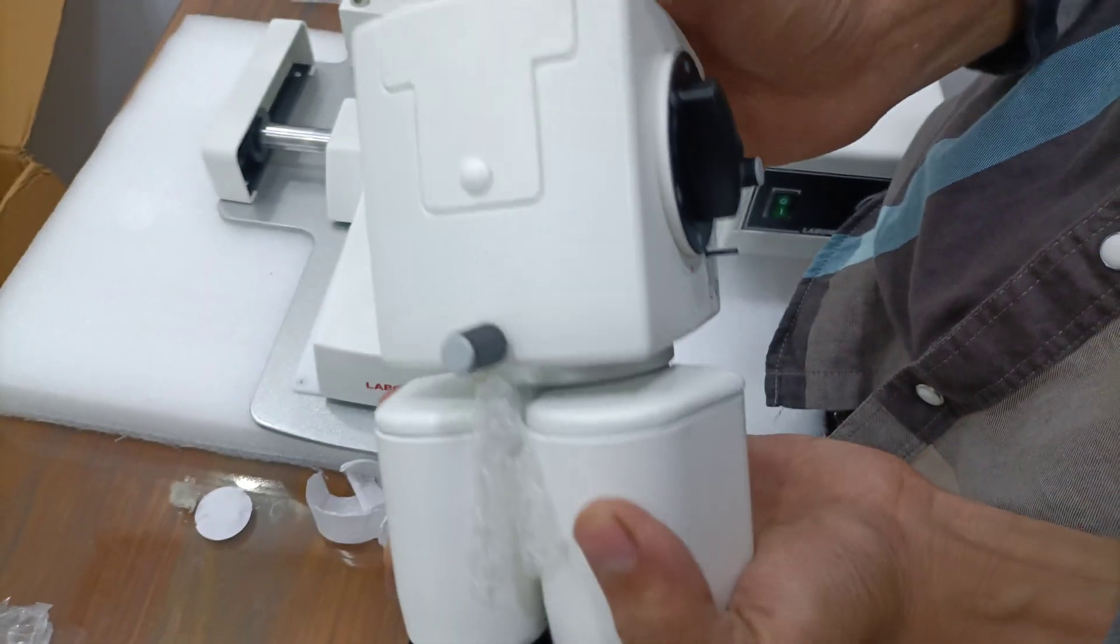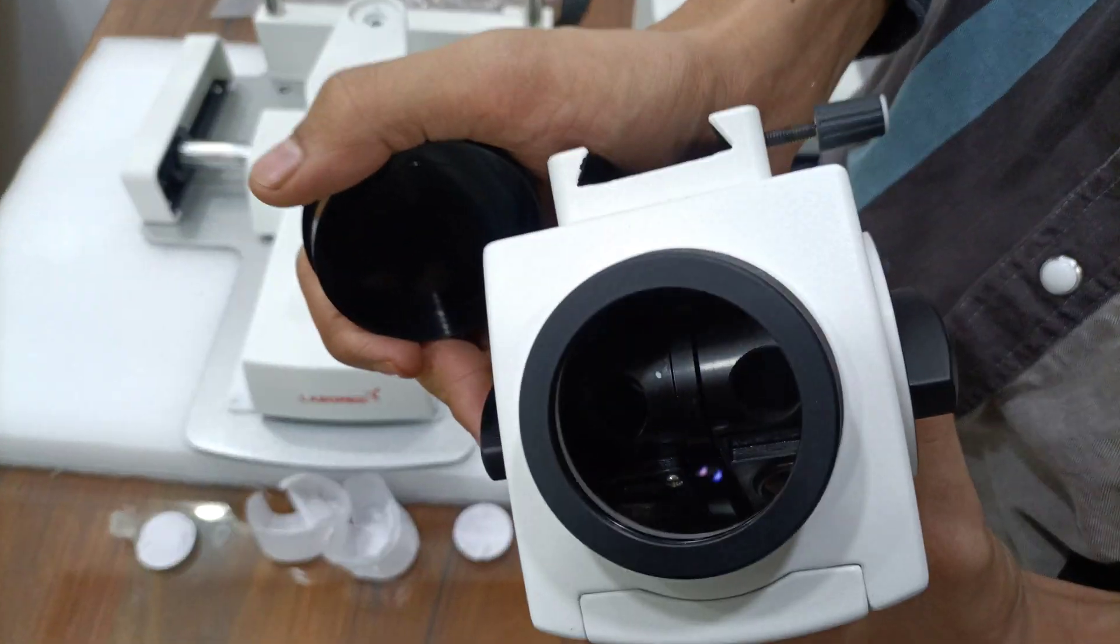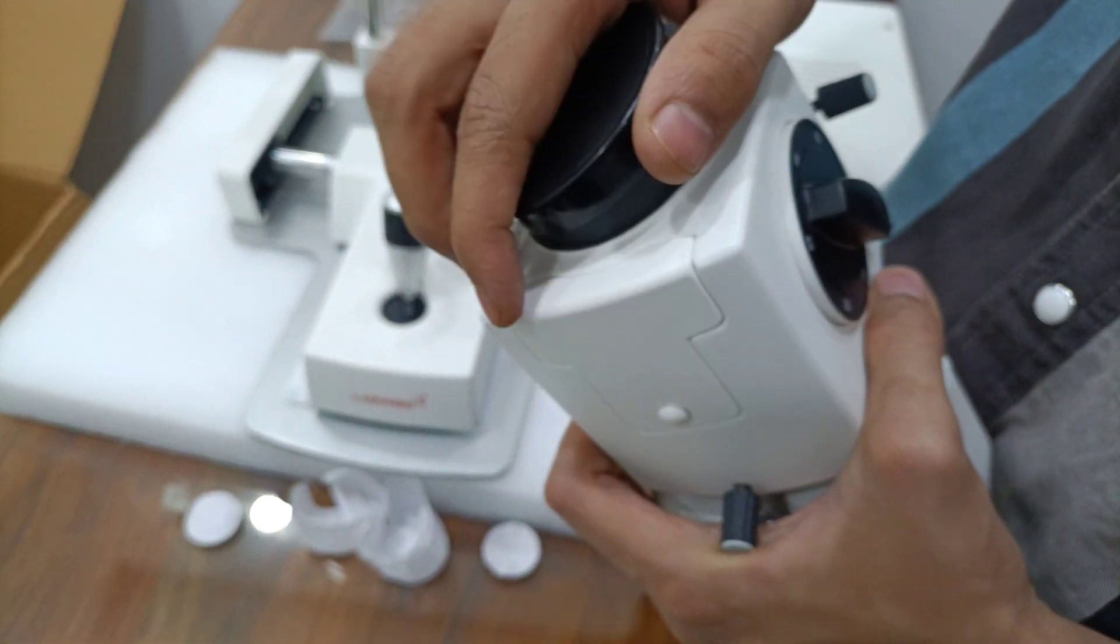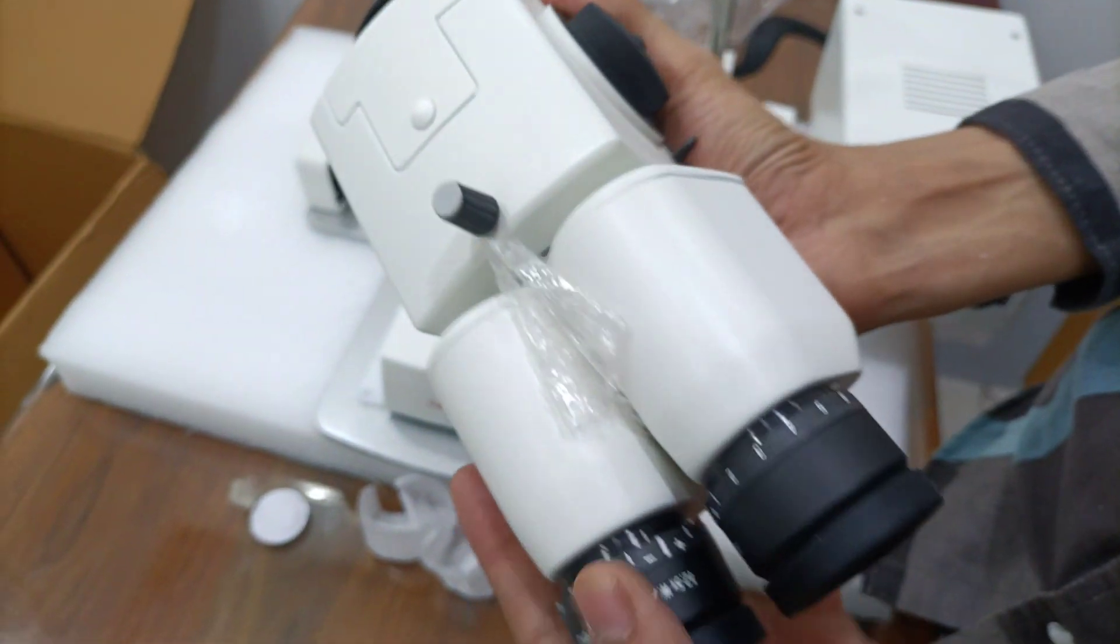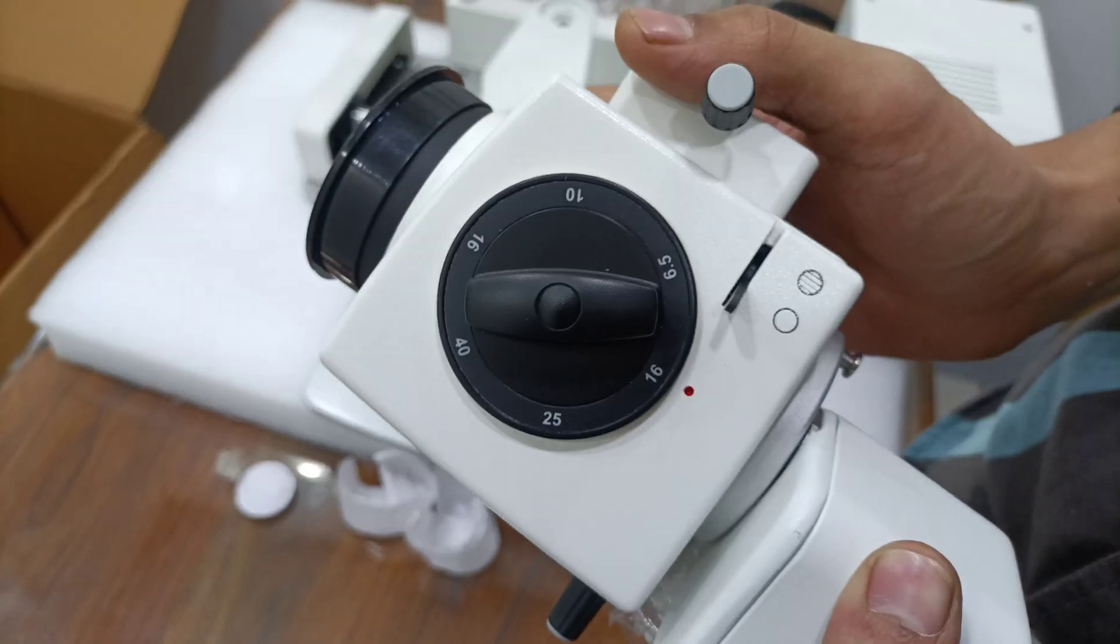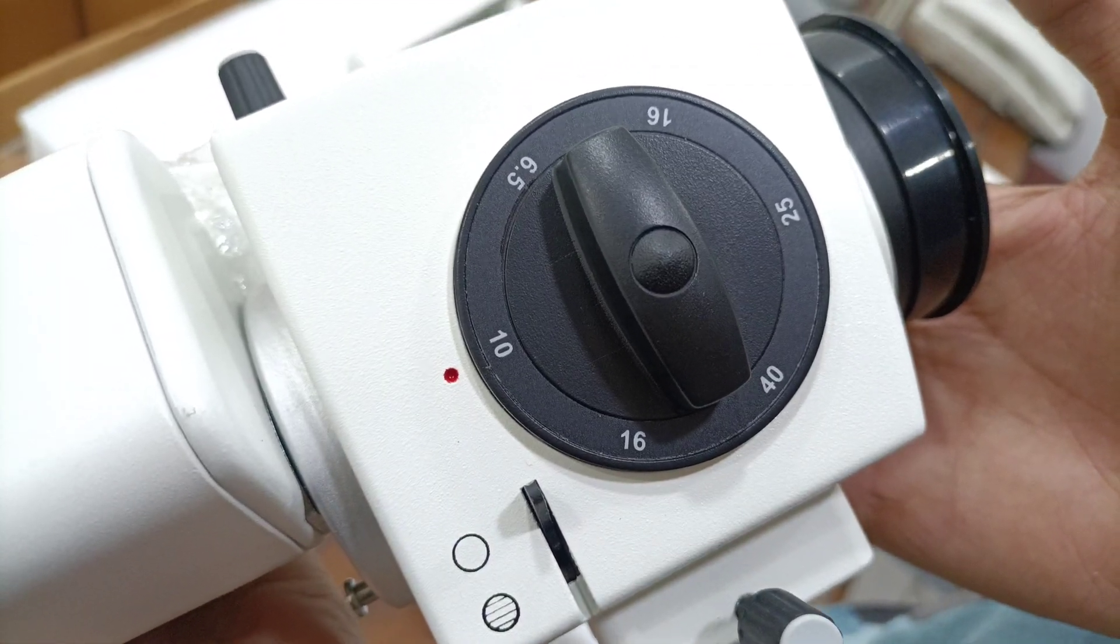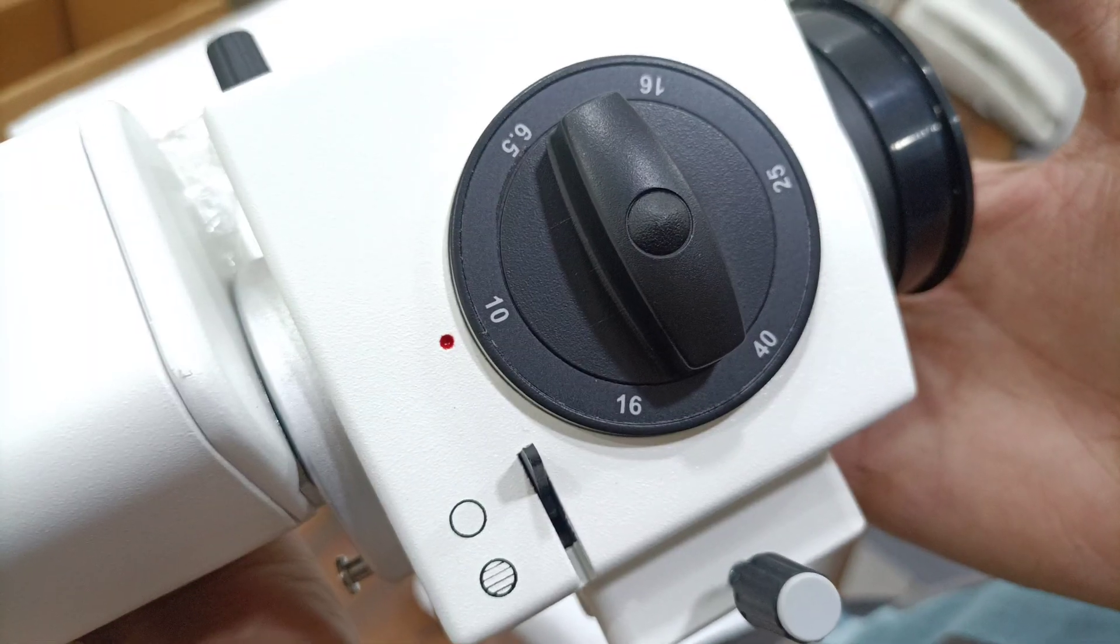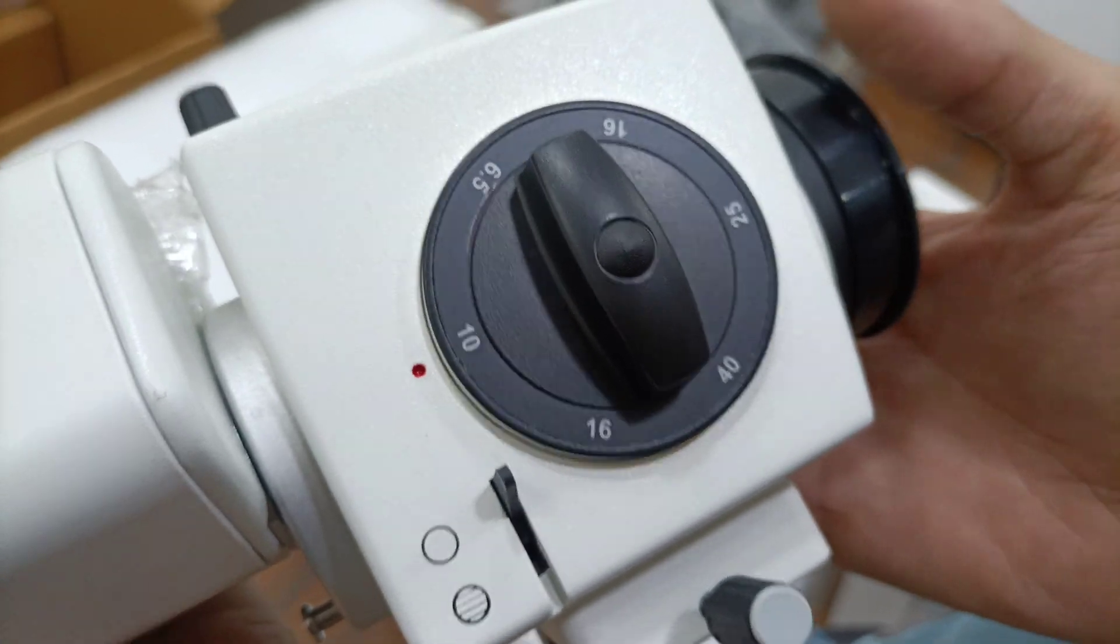Cover will remove. Five steps. Ten, sixteen, forty, twenty-five, and six point five.